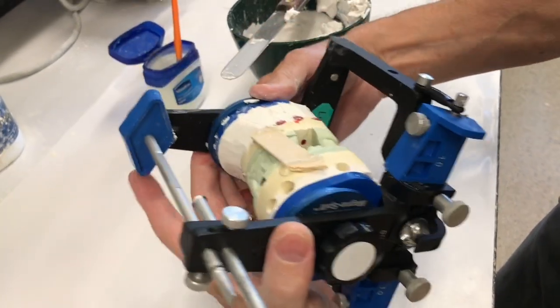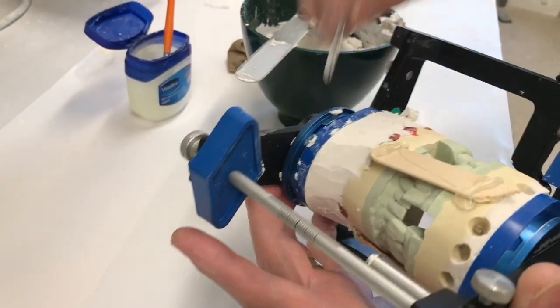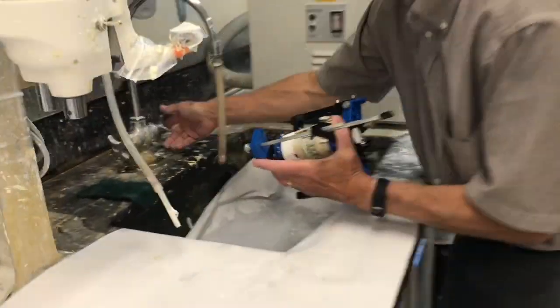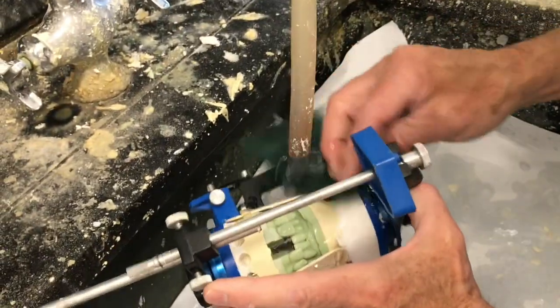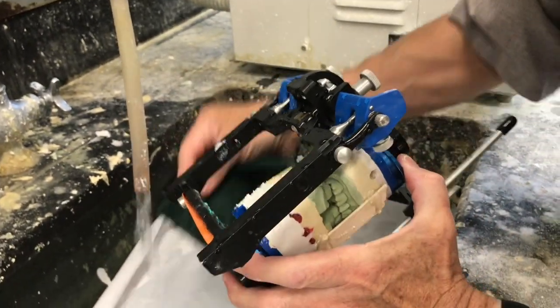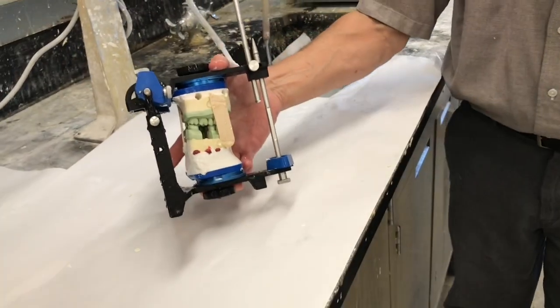It's looking like that right now — it's starting to set up. It's still soft but it's not runny. From here I can fill in any little gaps and voids, and then take it right over to the sink. Take my blue scrubby again, put it right under the water, and smooth it out. After this is set up, we'll remove the wax around the ends of the pins, just like we did on the upper, and remove the tongue blades holding the upper to the lower. After you've got a full set, if you want to sandpaper and get it a little smoother, you can.